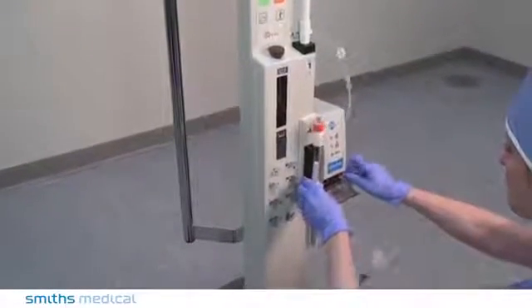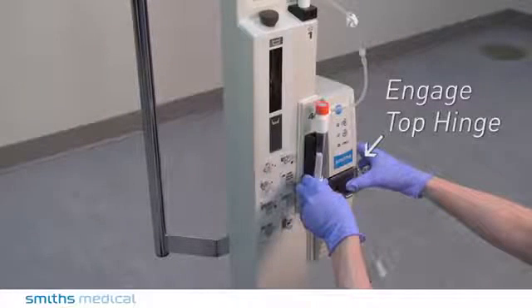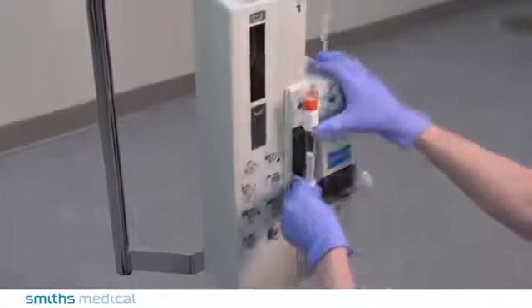Insert the patient line into the open slot. Push the door up to engage the top hinge. Latch the bottom of the door to secure.